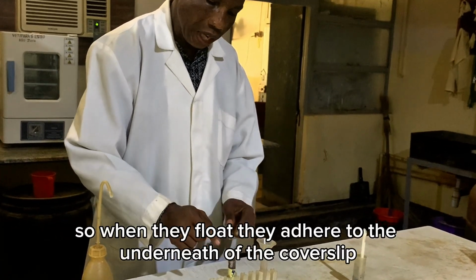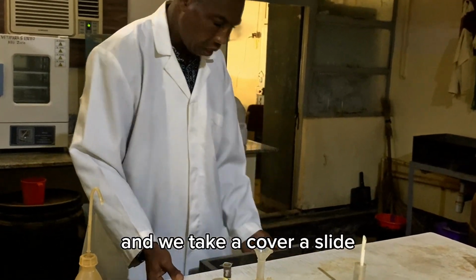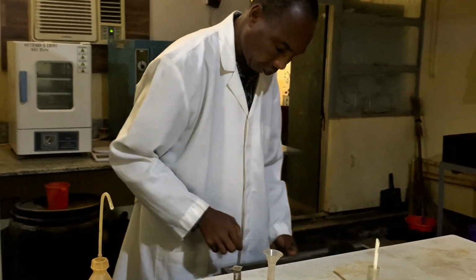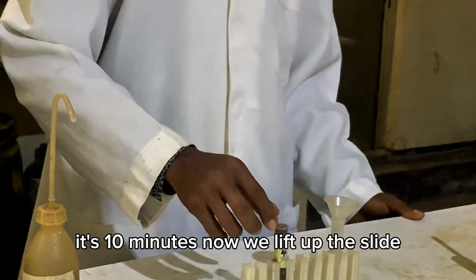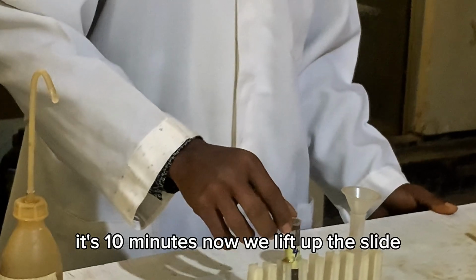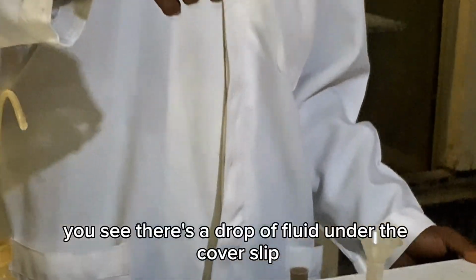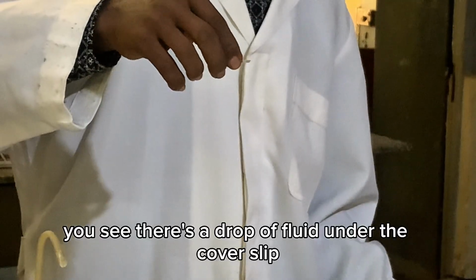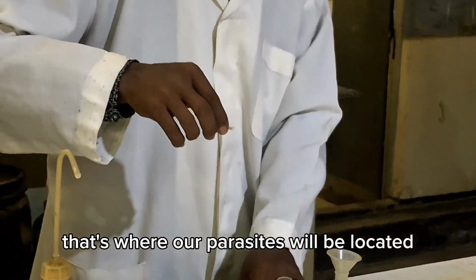So when they float, they adhere to the underneath of the cover slip. And we take a slide. After 10 minutes, we lift up the cover slip vertically. You see there's a drop of fluid under the cover slip. That's where our parasites will be located.